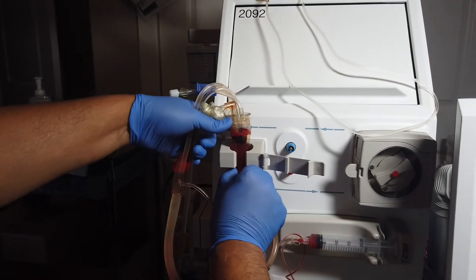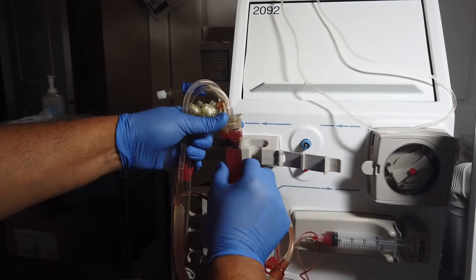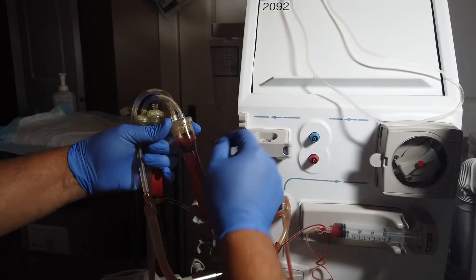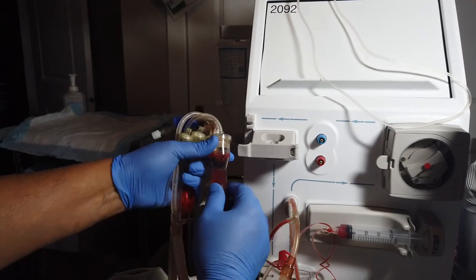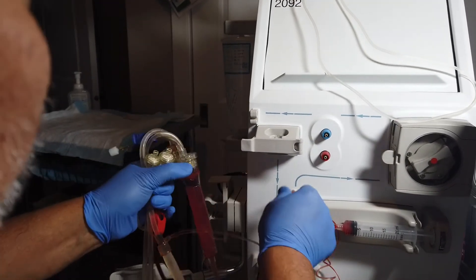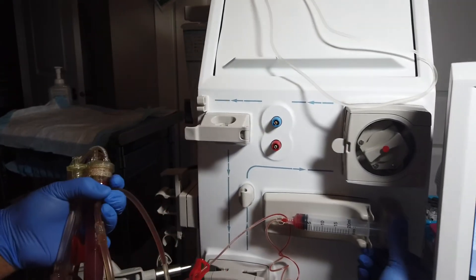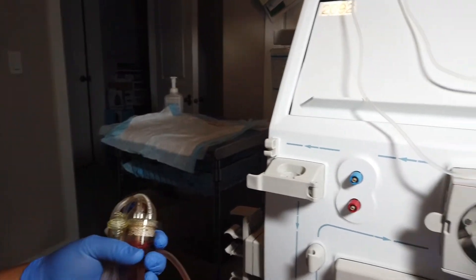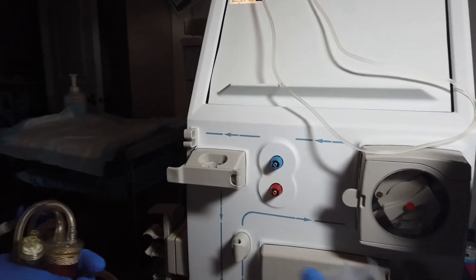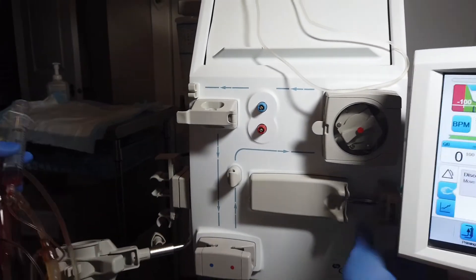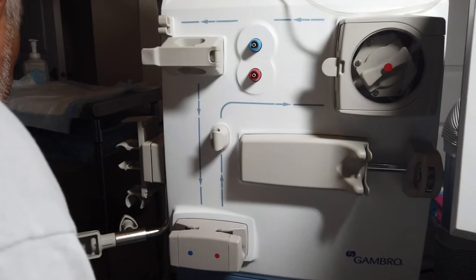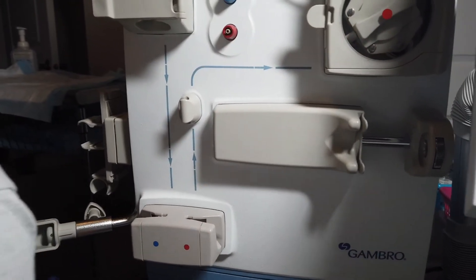I try to keep everything in one hand. Squeeze this to get this out again. Inspect your chamber and see how bad or how much blood is clotted up. Release that and then I unscrew the heparin. Now all the line is off and I throw all the stuff away.